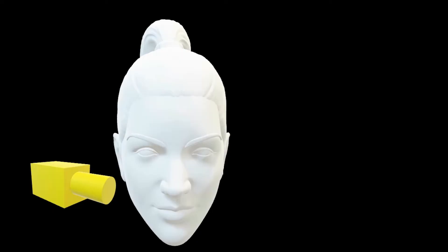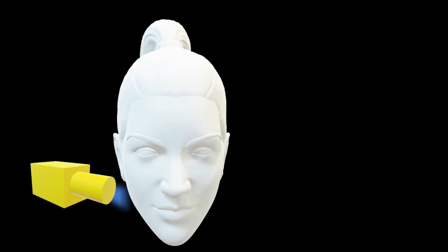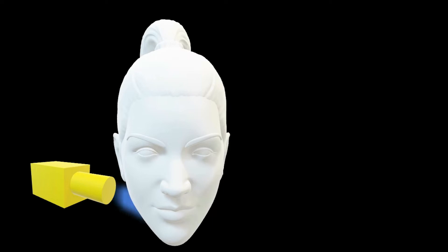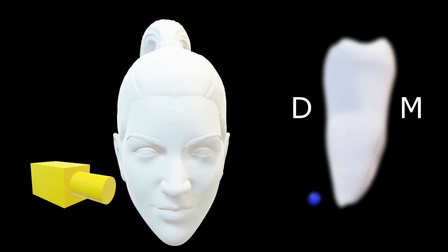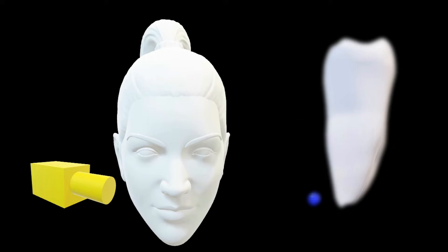Had the object been lingual to the tooth, this is what you would see. You do the same thing — shift the tube head distally. But now, in the final image, you would see that the object also moves distally. This would tell you that the object is placed lingually in relation to the tooth.